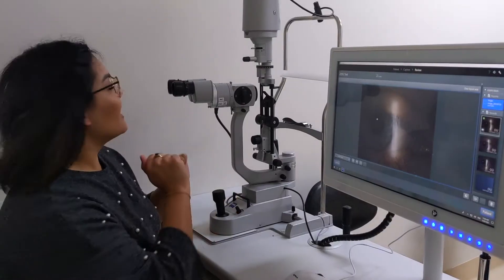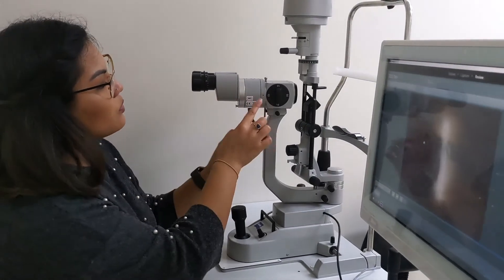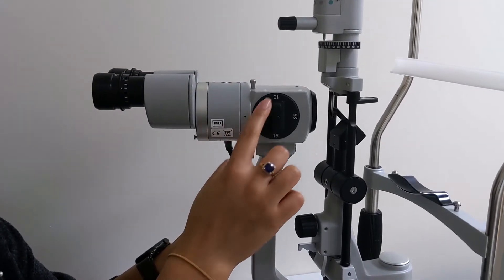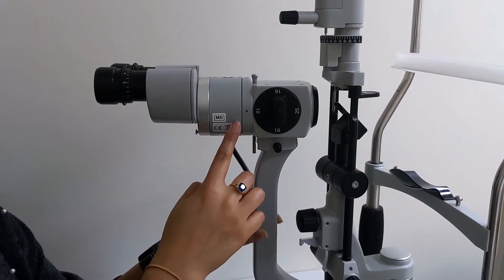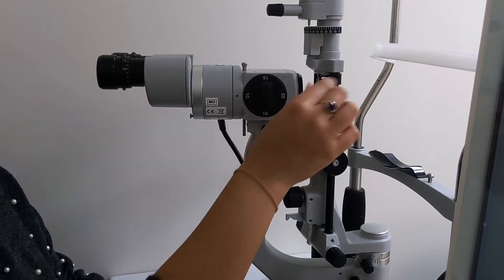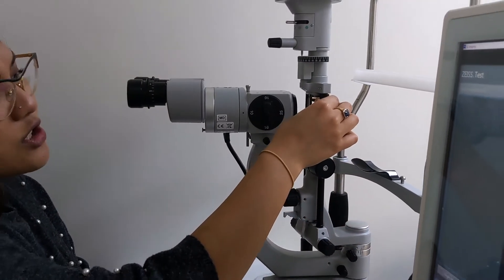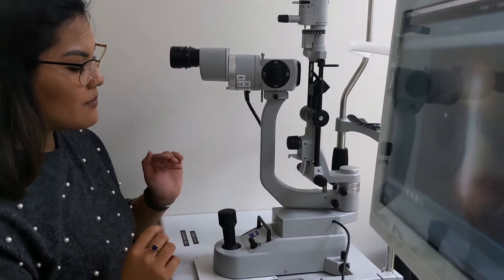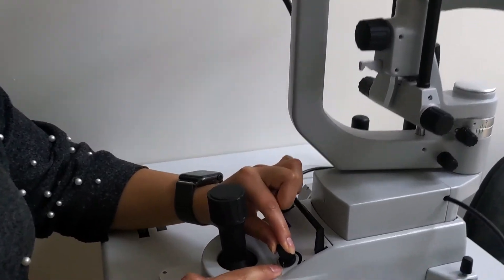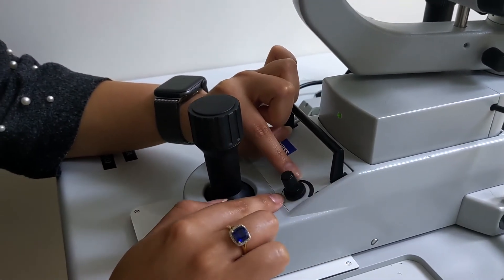In conclusion, the main issues to watch out for: first, magnification — always start on the lowest setting, which is 10x, then move to higher magnifications. Second, the diffuser — check if it's all the way in, as that will reduce image brightness. Third, the brightness knob — if it's turned all the way down you won't see any light, so turn it back up if you think something is broken.